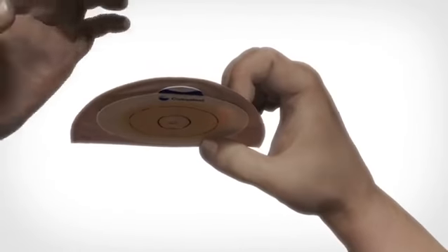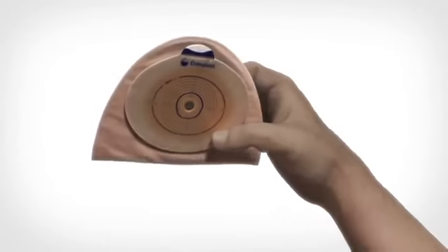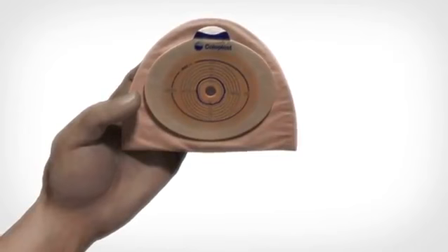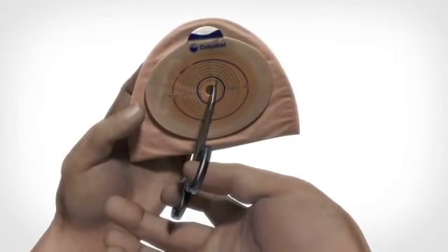Pull away the bag a bit to ensure you don't damage the bag itself while cutting the hole. To cut, use a pair of scissors, not too big, and preferably with a curved shape.